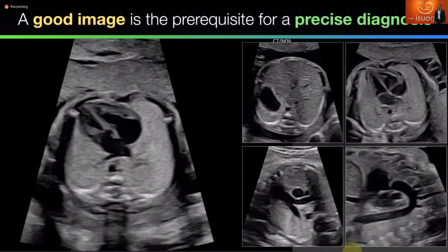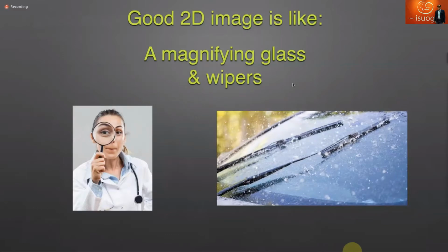Then keep in mind that a good image is like a magnifying glass, as I'm showing you here, because you see details. And it is like wipers: if you compare it to what we are doing, not having a clear image is like driving in the rain without wipers, which is too dangerous.